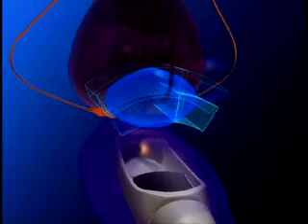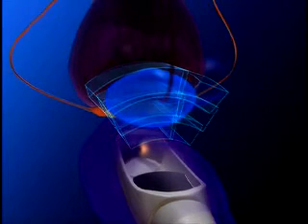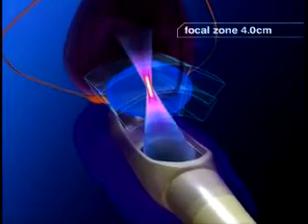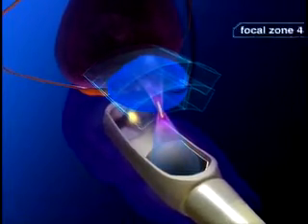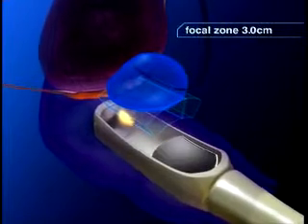Similar to what happens when sunlight is focused through a magnifying lens, precise focusing of ultrasound energy during HIFU treatment elevates the temperature of the tissue in the focal zone very rapidly, while intervening tissue between the transducer and focal zone is kept at a safe temperature.